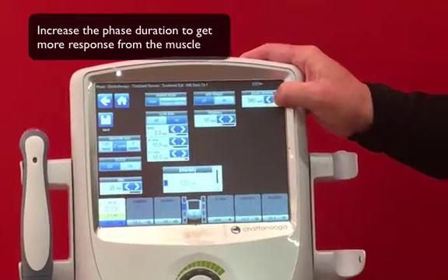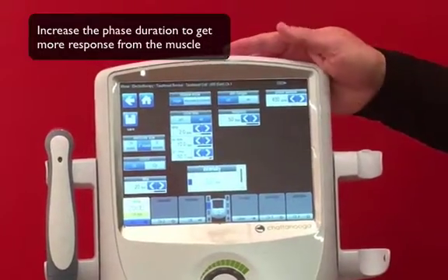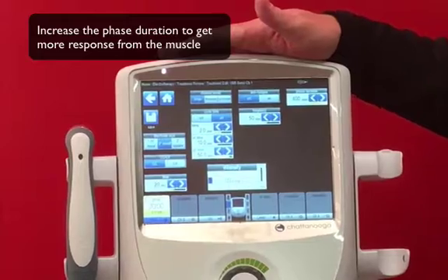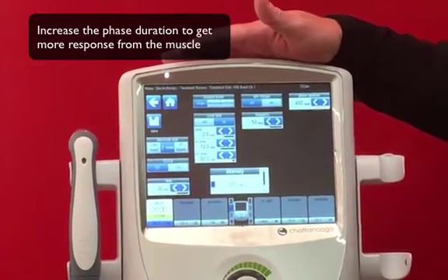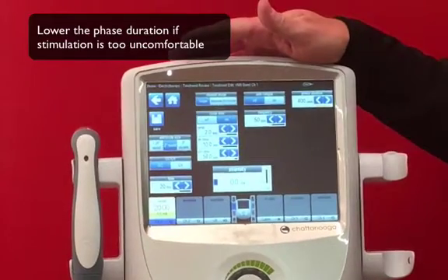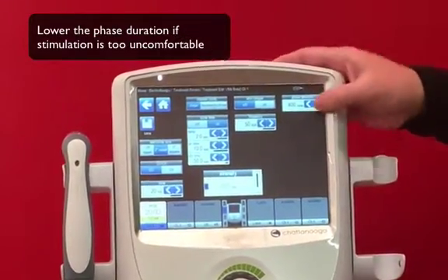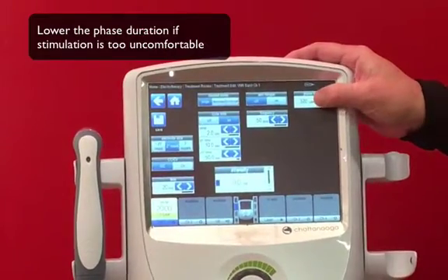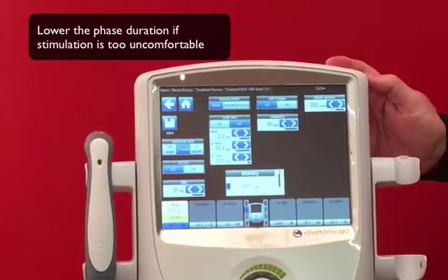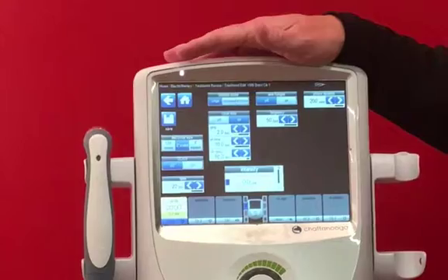For example, in a large person with quadricep dysfunction post-ACL reconstruction, you may go up to 400 microseconds to get deeper penetration and a higher mode of recruitment. On the flip side, if it's too high on a smaller patient with a smaller muscle group and lower function, it can actually be uncomfortable. That's why it's preset to 200.